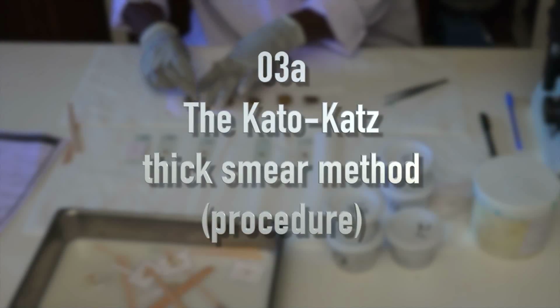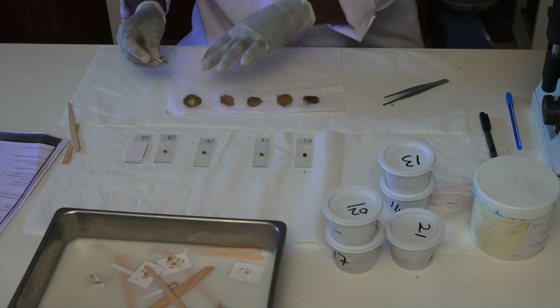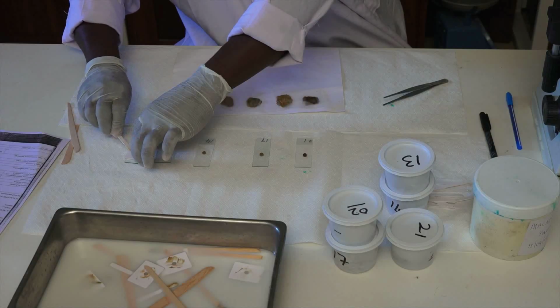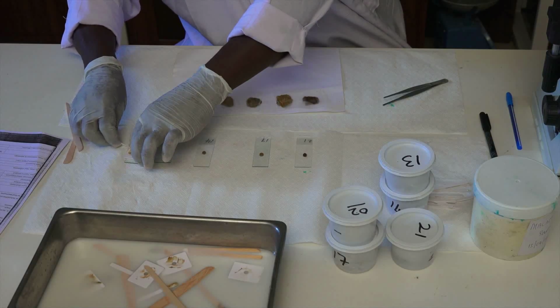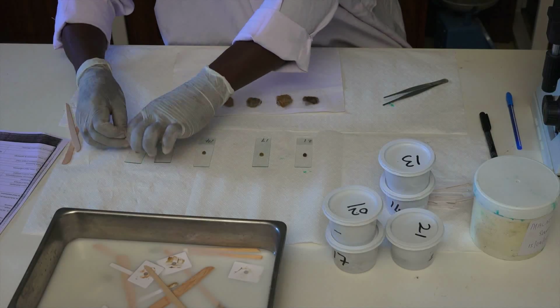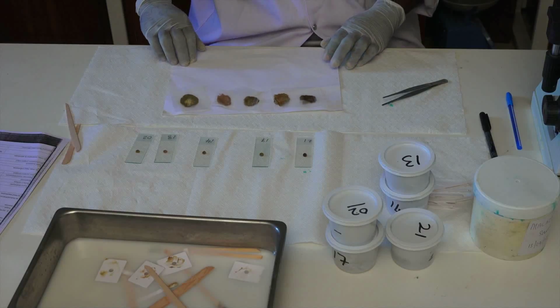This video shows the Kato Katz thick smear method. This method is commonly used during surveys or in routine diagnosis to detect helminth eggs in feces, including those of soil-transmitted helminths and intestinal schistosomes.